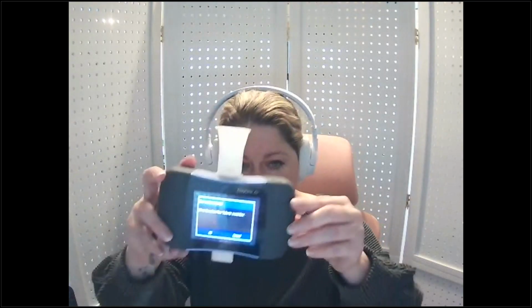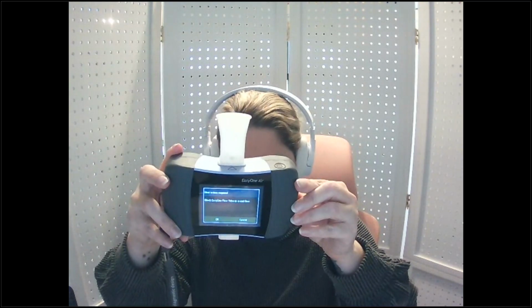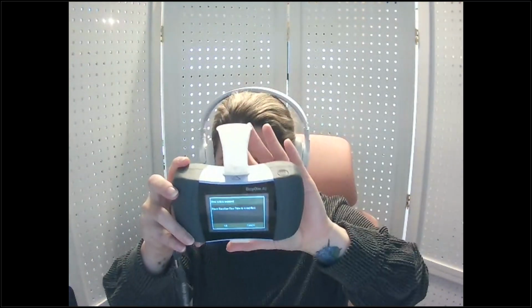The first thing it's going to ask us to do is to block the flow tube. Again, I'm always fighting a glare, guys, so hopefully I can get it where you can see it. It's asking me to block the flow tube so that the ultrasound sensor can do a quick baseline setting. Basically, we just want no air moving through the mouthpiece while it does this quick self-check. We can leave the plastic on the front. If you're using a filter, your filter kind of does it for you, or you can use a gloved hand to the front or the back. On this device, I normally use a gloved thumb and just cover the bottom.